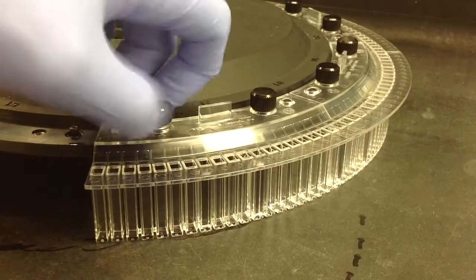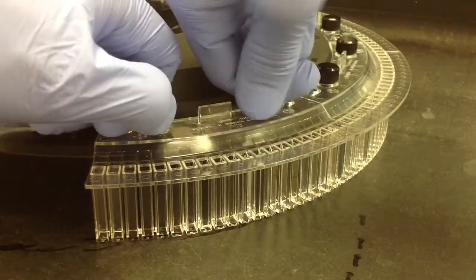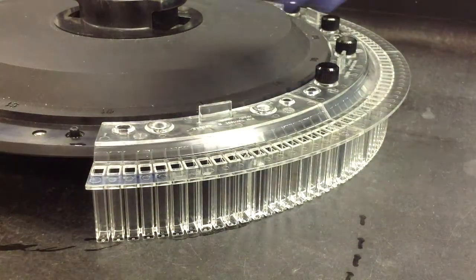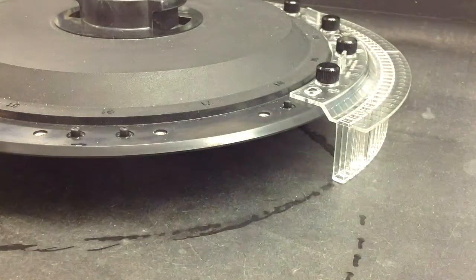For a closer view of how I was removing those, it's just basically two thumb screws. You don't need any tools, and you don't really need to tighten these a lot when you're putting them back on.